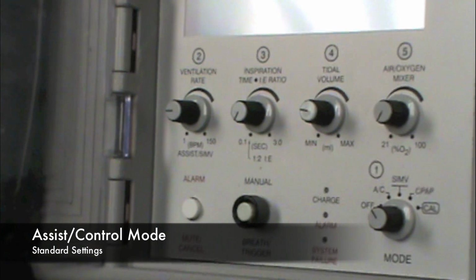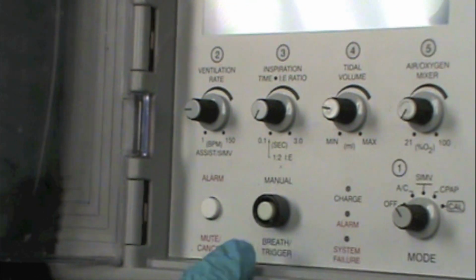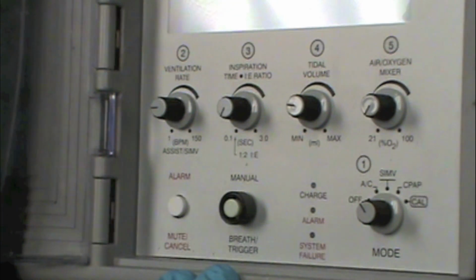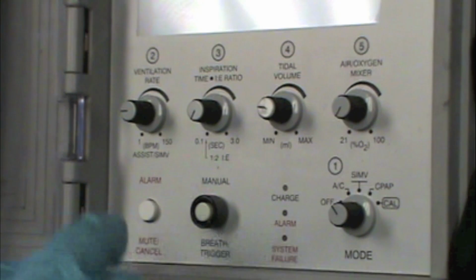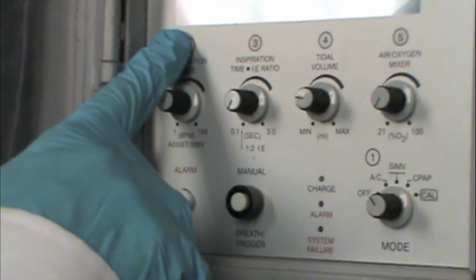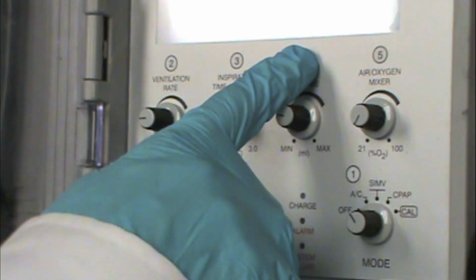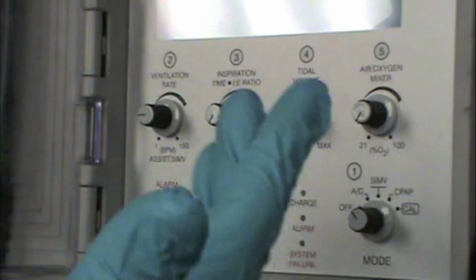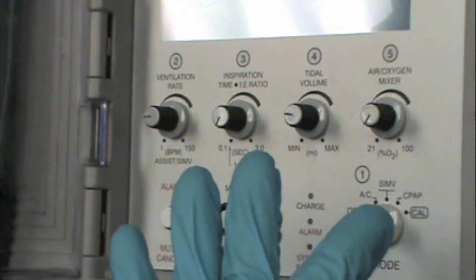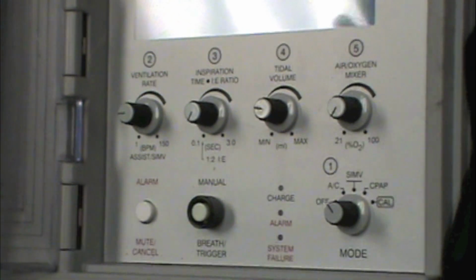So when we put a patient in assist control, that means that we're going to set a tidal volume and a respiratory rate, and the ventilator will deliver that rate and volume over the course of 1 minute. So right now the ventilator is set to give 12 breaths a minute with a tidal volume that we set at 500, and then it will deliver that volume and rate to the patient. If they're breathing spontaneously on their own, they can trigger a breath whenever they want. That's why it's called assist control.